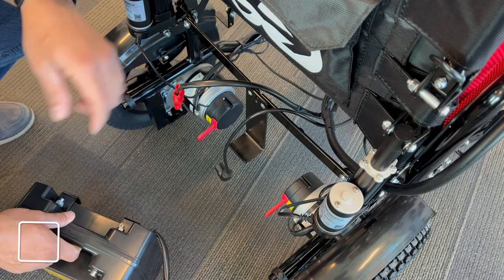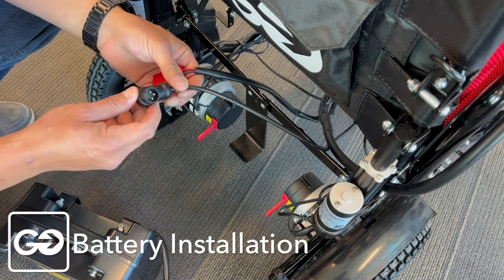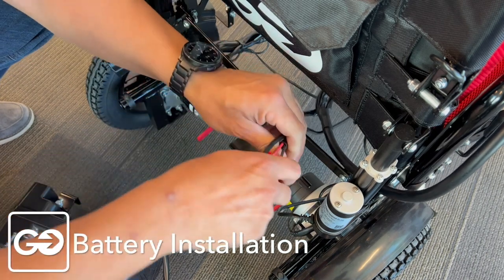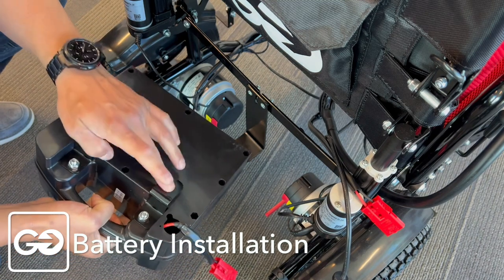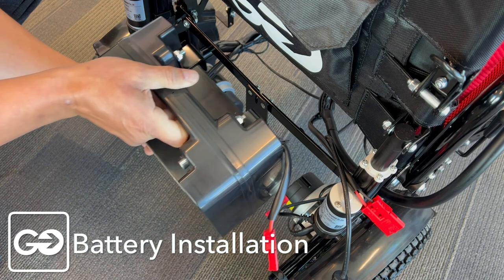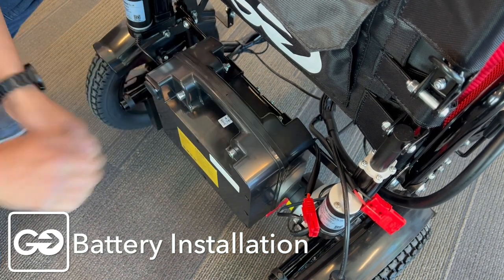Let's install the battery on the X9. You're going to have a couple of cables in your way — this is your power cable and your power-to-motors cable. Move these out of the way. You're going to notice two tabs on the battery on the back side — those are going to fit nicely right on this bar here. Take the battery, place it right over the bar, and slide it down to get our battery in place.